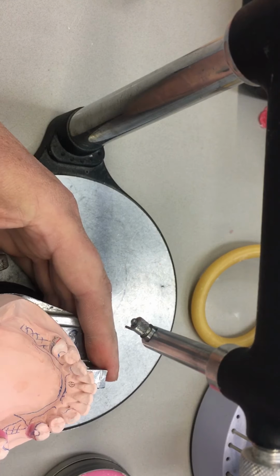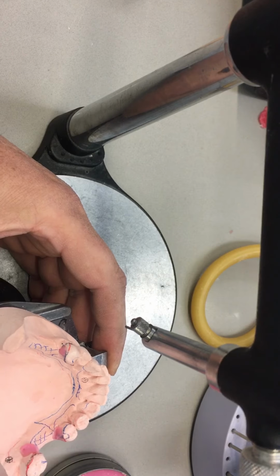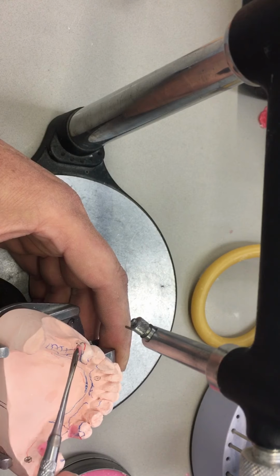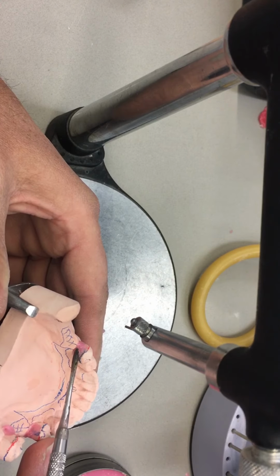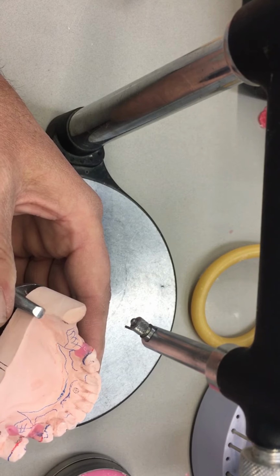There is a different order of operations. Sometimes some people will start off with the major connector. We know that underneath this lingual bar in the anterior would be about 0.3 to 0.5 millimeters. In some postgraduate courses, we wouldn't block out the lingual bar at all, and then through electropolishing and trimming and polishing, you'll gain your 0.3.